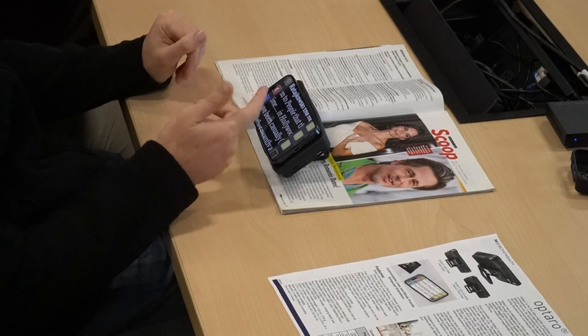It is a very nice image. One thing to bear in mind though is that the iPhone screen can be a little glary. Touch screens tend to be a bit glary, and here under the studio lights we're definitely getting some glare on the screen — whereas with a lot of other electronic magnifiers that wouldn't be so much of an issue. Something to bear in mind.